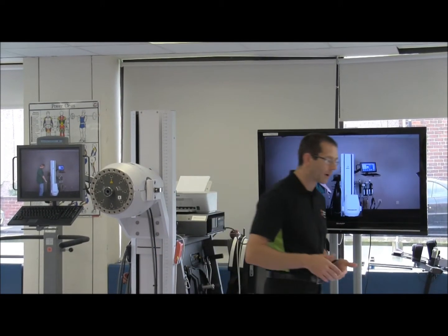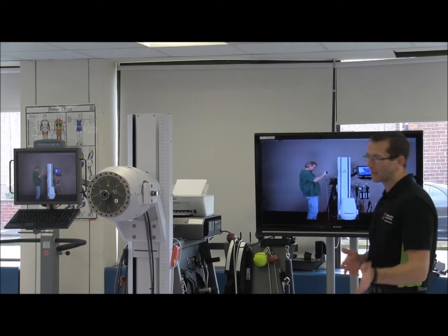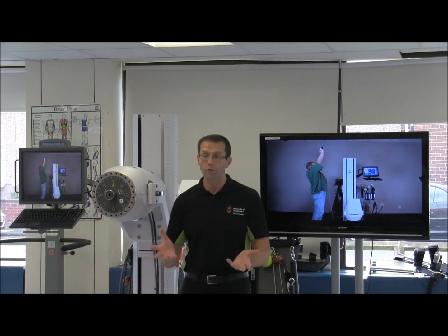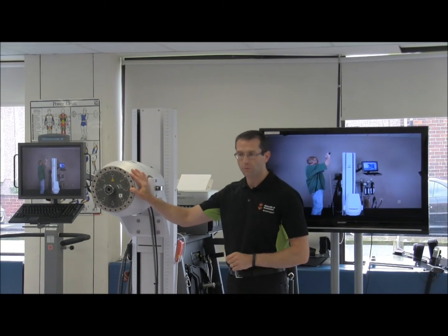When we walk — just walking backwards and forwards — I'm not just flexing and extending the knee. I'm abducting and adducting the leg, I'm internally and externally rotating. So it's much more three-dimensional in movement, and that's what this system gives us a bit more scope to do.